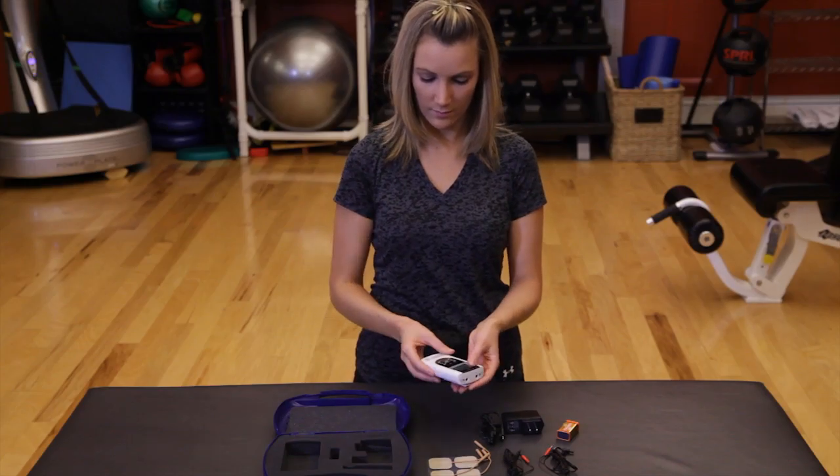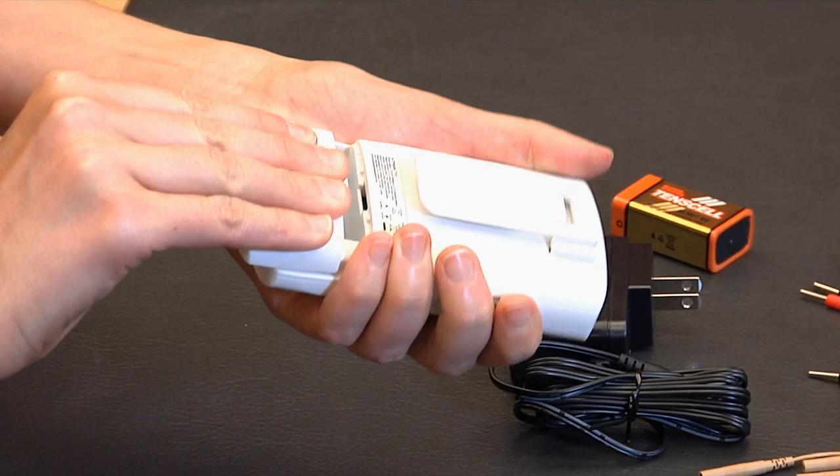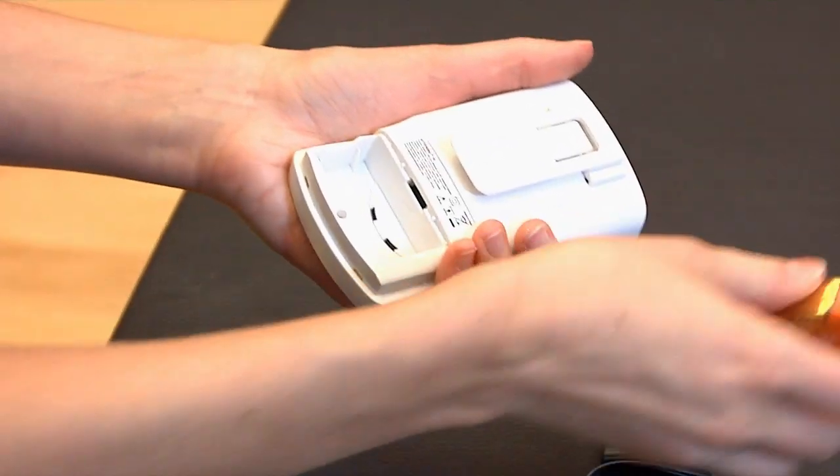To begin the process, open the back of the unit and insert the 9-volt battery and close.